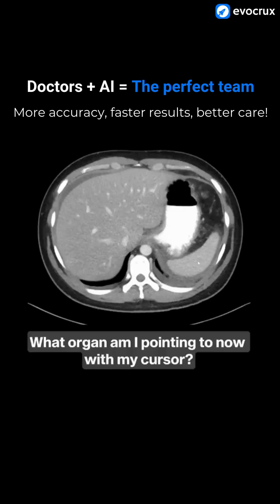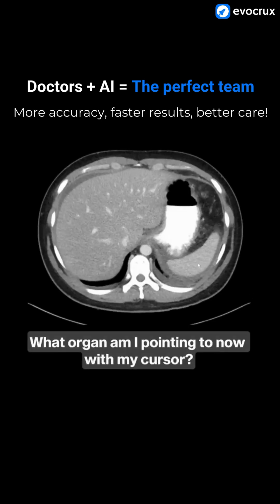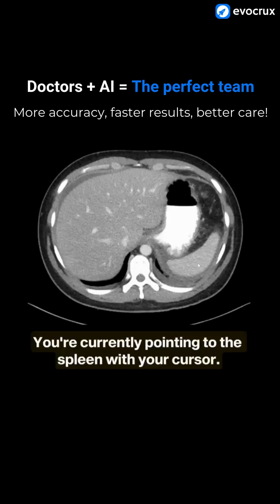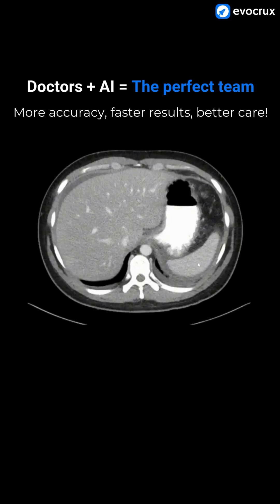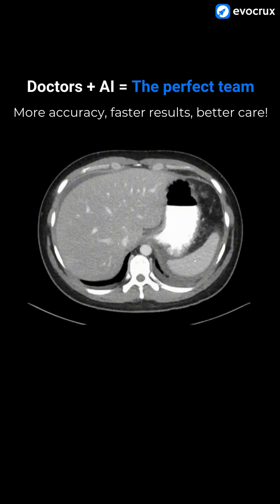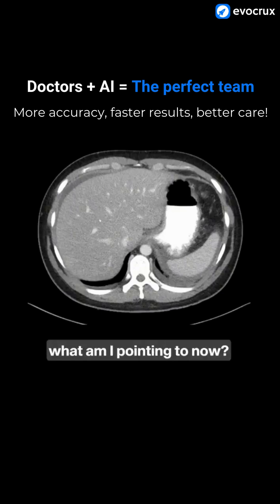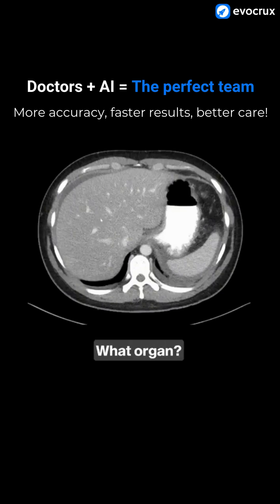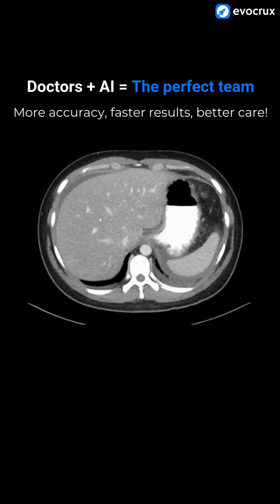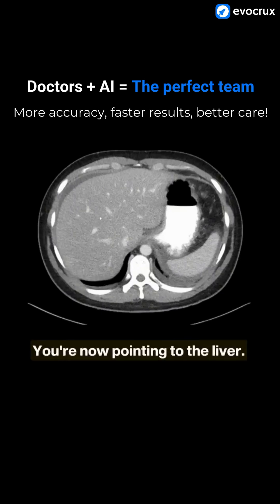What organ am I pointing to now with my cursor? You're currently pointing to the spleen with your cursor. Okay, Gemini, what am I pointing to now? What organ? You're now pointing to the liver.